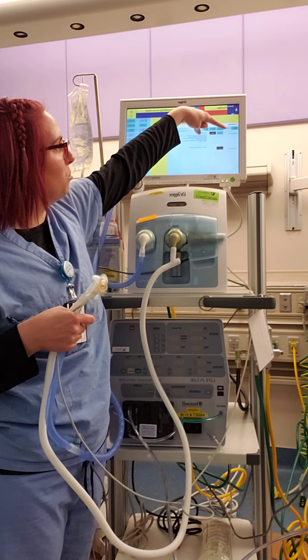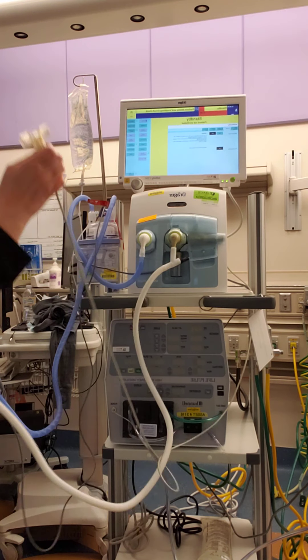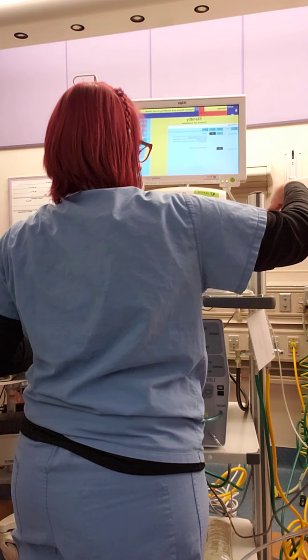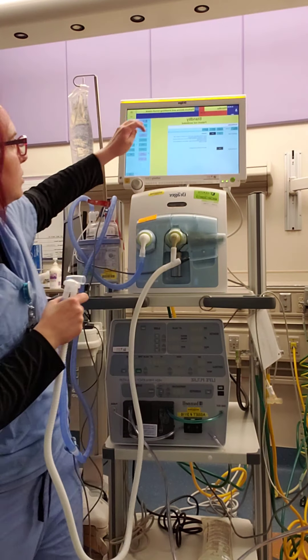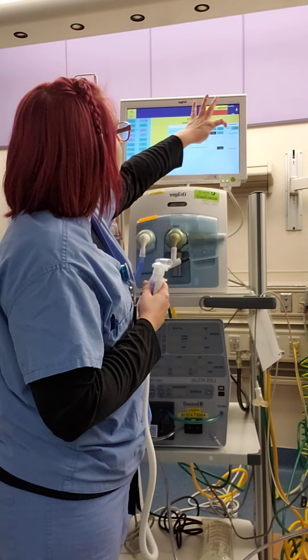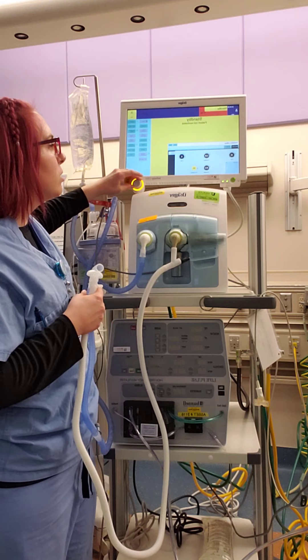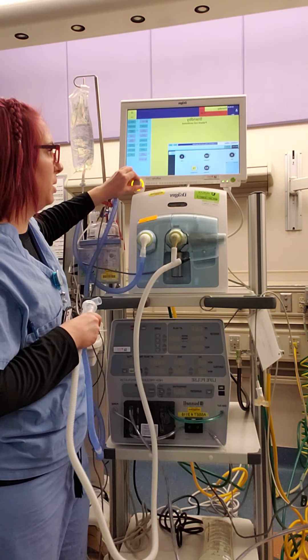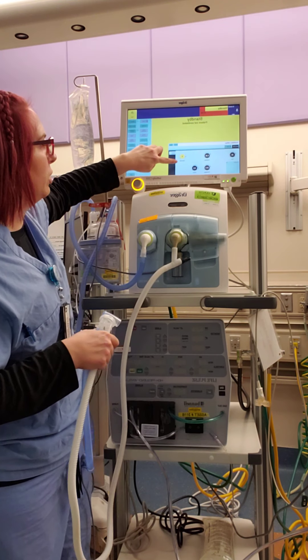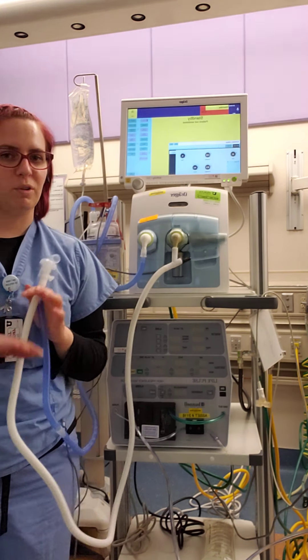The breathing circuit check is finished. We come to tube and NIV — we want to make sure we are in a non-invasive mode of ventilation, otherwise it's not going to work for us. Take your flow sensor and take it out of line, then secure it in a clean situation in case you decide to move to conventional ventilation on this Draeger later, so your flow sensor stays clean. Go to start standby settings — we are going to be in CPAP. I don't really like to go below seven or eight on my PEEP; I feel like you start de-recruiting after that. For this baby we're going to go to a PEEP of eight, and you can adjust your flow — always make sure your Draeger is in a flow setting, typically somewhere in the five to ten range.